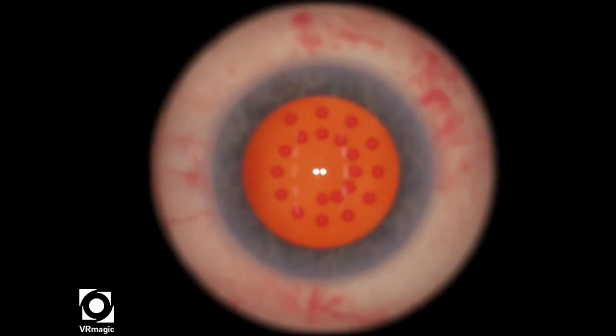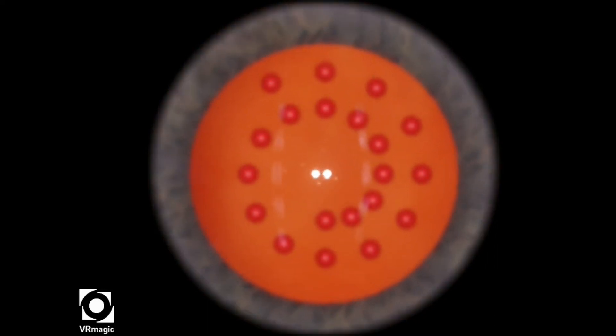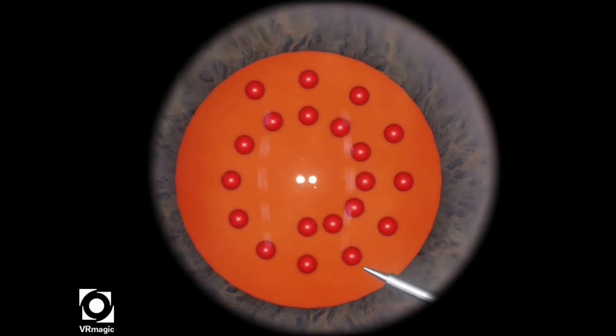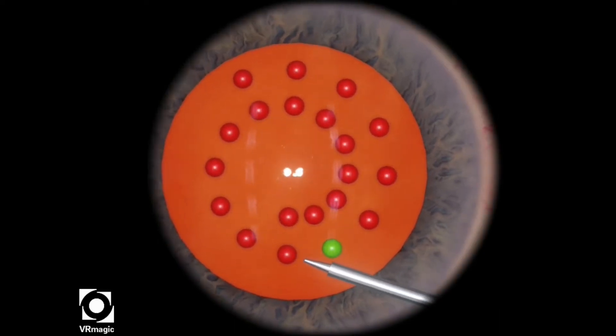So first bring everything to view and in appropriate magnification, so it's easier to shade the spheres green.